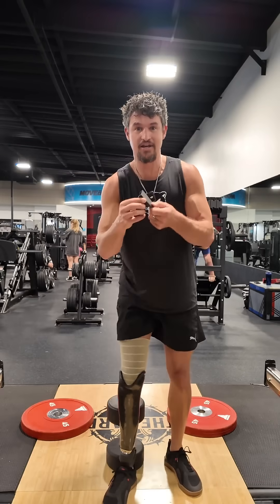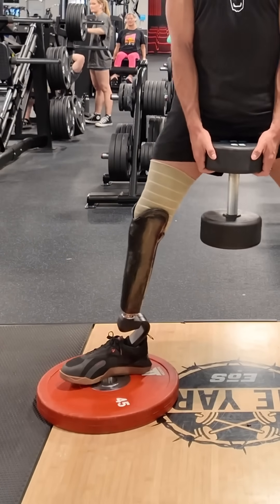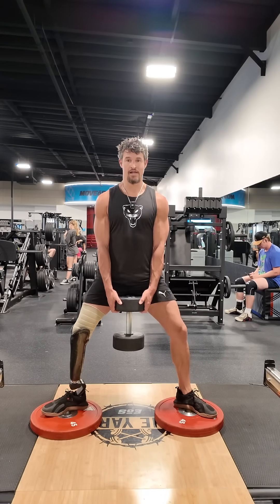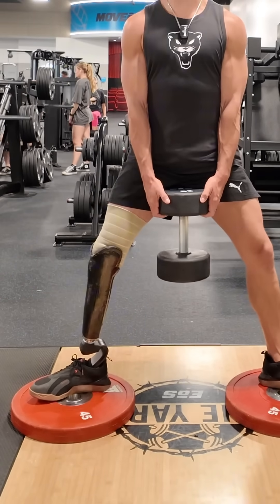Here we go, got it out. So you remove the heel pad — look how my foot has more range of motion, like contact, even in plantar flexion. Almost the whole foot's touching as I'm going back. And as I go onto the toe, there's still more touching on the heel than I've had in the past.